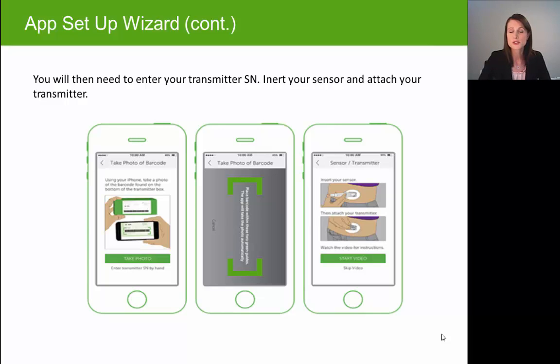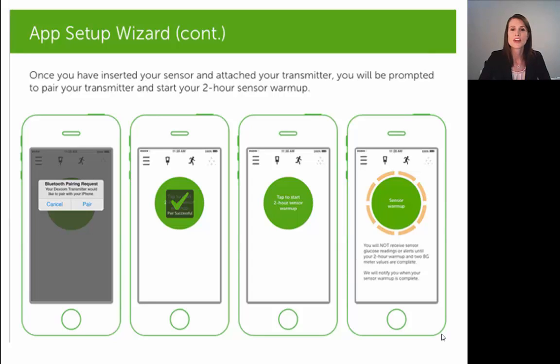At that point it will ask if you want to watch a video on the sensor insertion, and especially if this is your first sensor insertion, we recommend that you watch that video. You do want to make sure you've inserted a sensor onto your skin and have your transmitter attached. The app will then attempt to pair to your transmitter — it can take up to 30 minutes — but within 30 minutes you should get that pairing request. Select 'Pair' and you'll get a green mark that says 'Pair successful.'